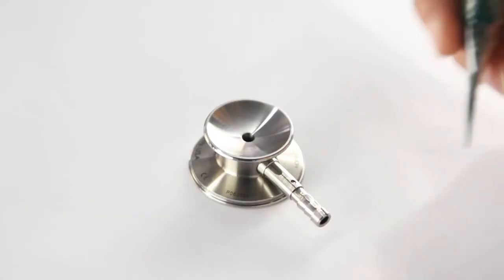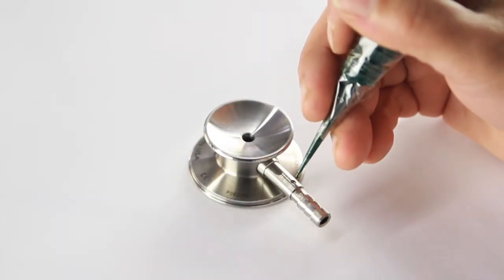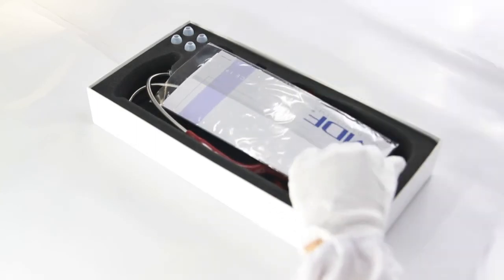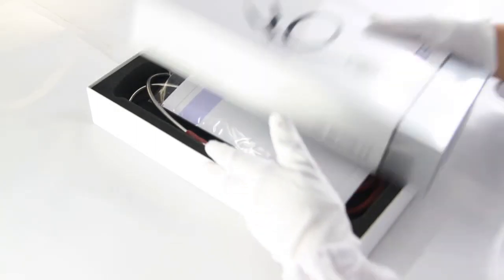And the final product is a thing of absolute beauty. It's a work of art, a jewelry-grade instrument. And because of our almost fanatical attention to detail and quality in our handcrafted process, we can top it all off with a lifetime warranty and free parts for life program.